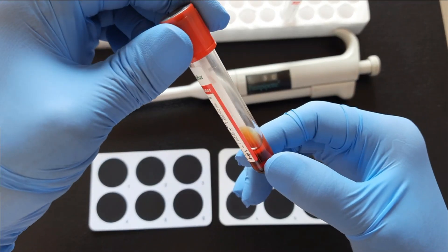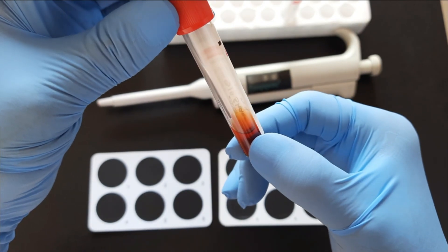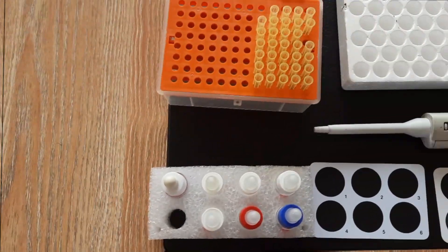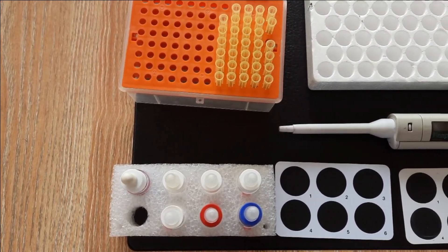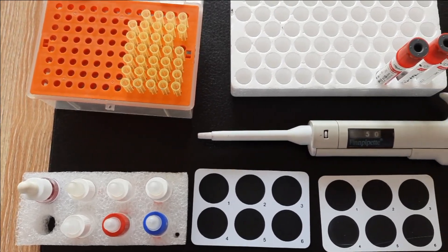Prepare the patient's serum by centrifuging the peripheral blood sample. What we are going to show today is a qualitative method. Bring reagents and samples to room temperature before use and follow these steps.